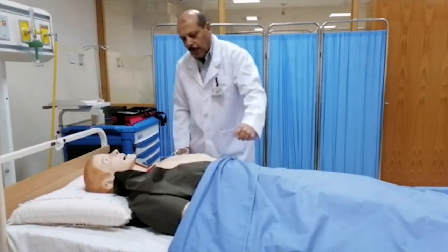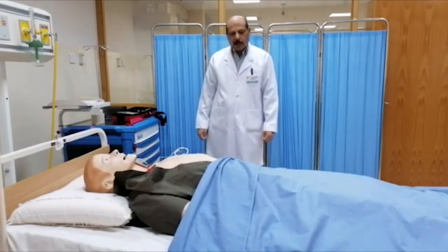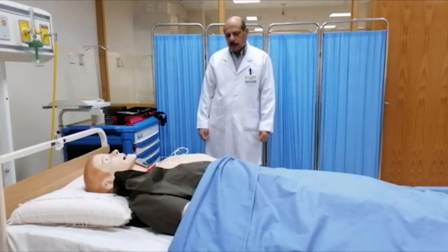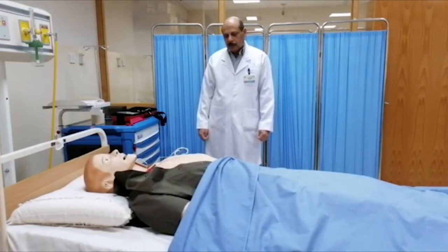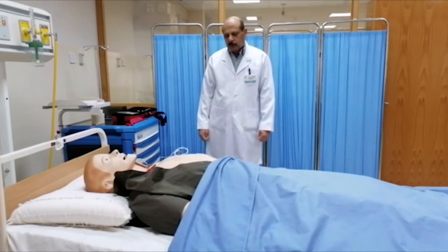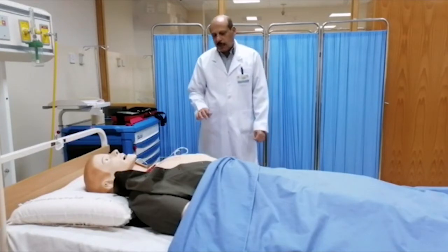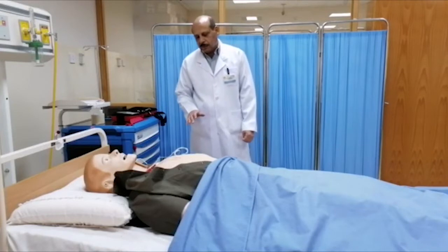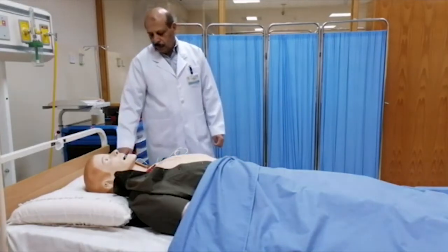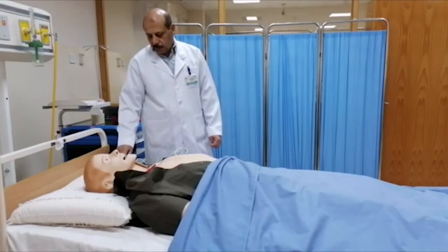Stay clear — it will be analyzing the heart rhythm. Stay clear of patient. Analyzing heart rhythm. No shock advised. If your emergency medical services have been called, it is safe to touch the patient. If needed, start CPR.